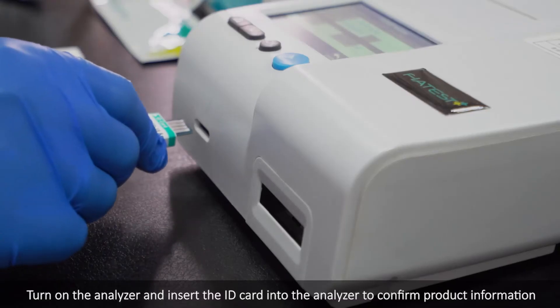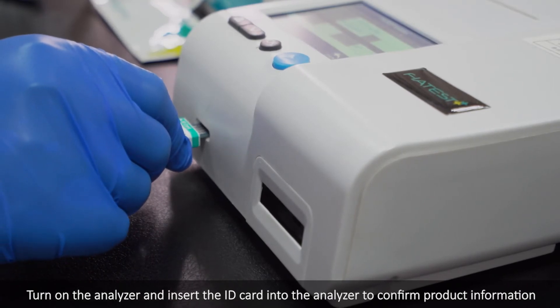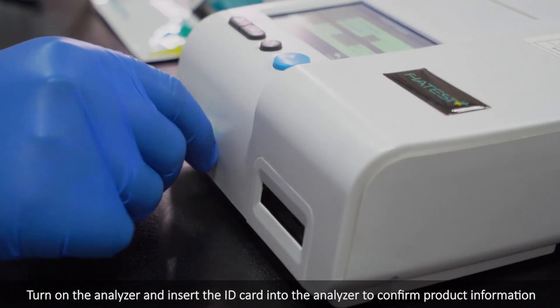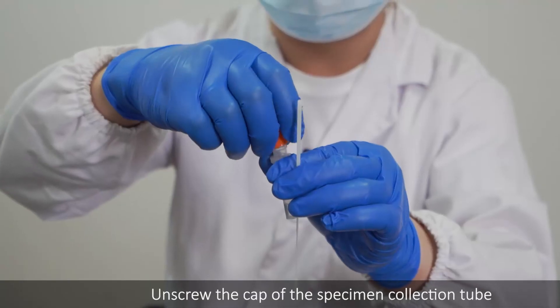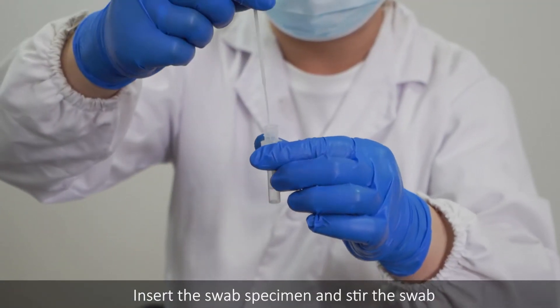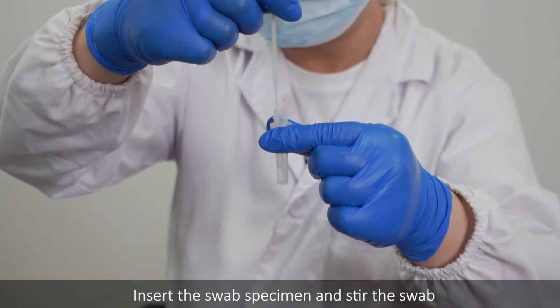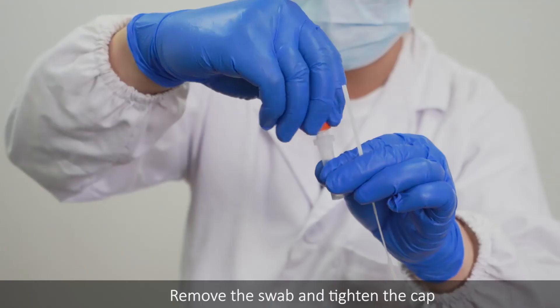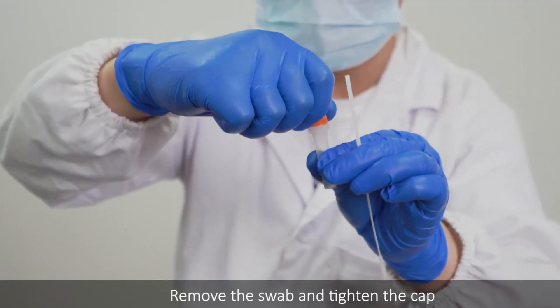Turn on the analyzer and insert the ID card into the analyzer to confirm product information. Unscrew the cap of the specimen collection tube. Insert the swab specimen and stir the swab. Remove the swab and tighten the cap.